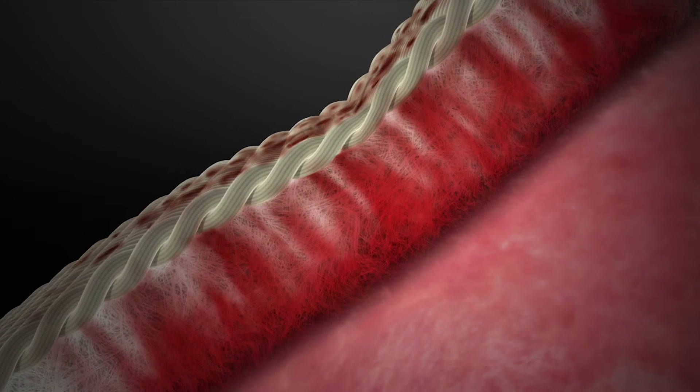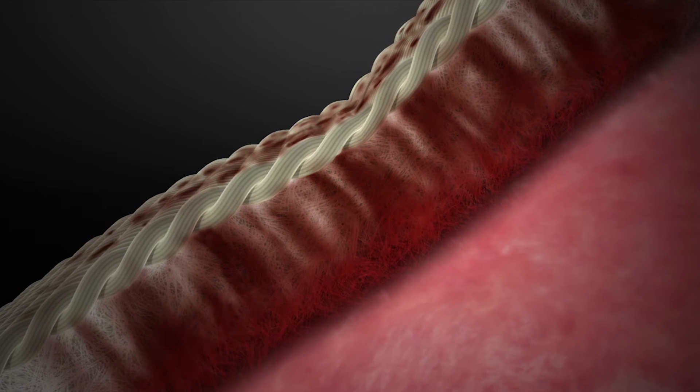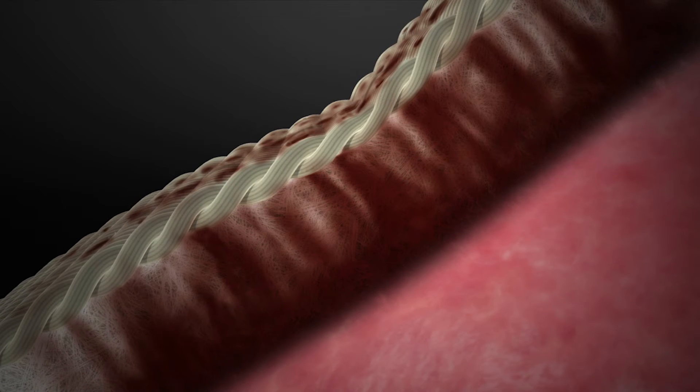Adhesive strength forms a tight physical seal with tissue and maintains a flexible barrier to bleeding.